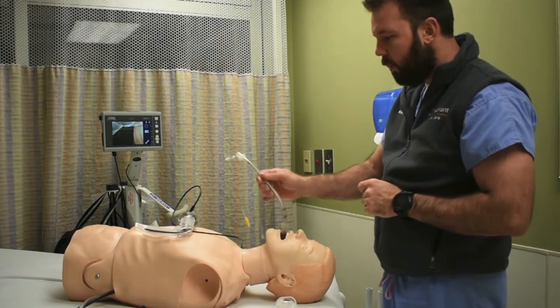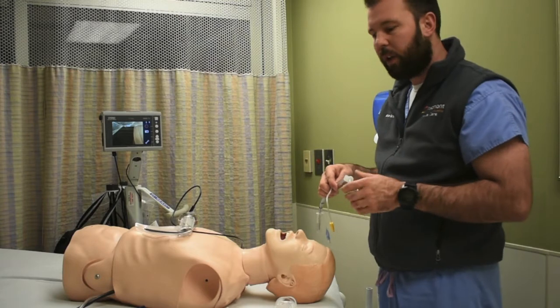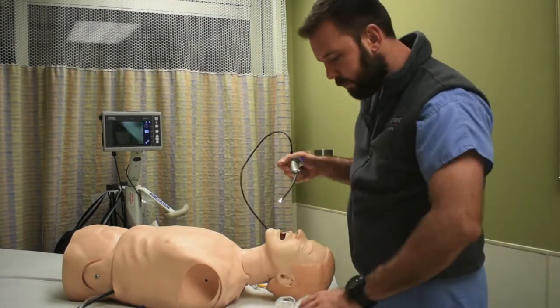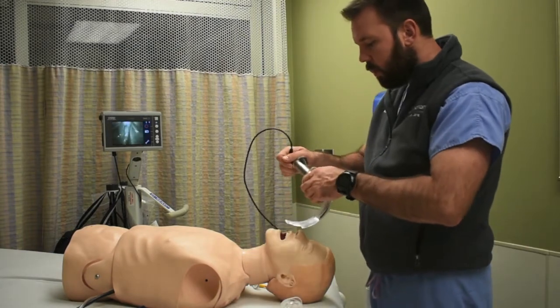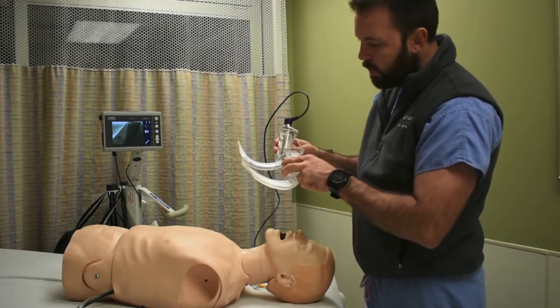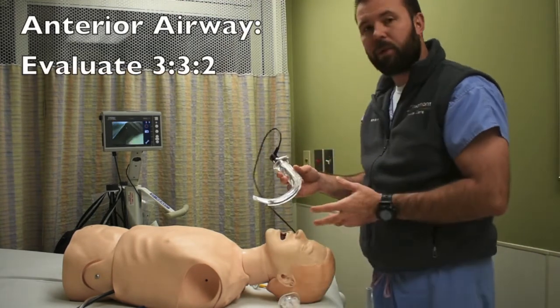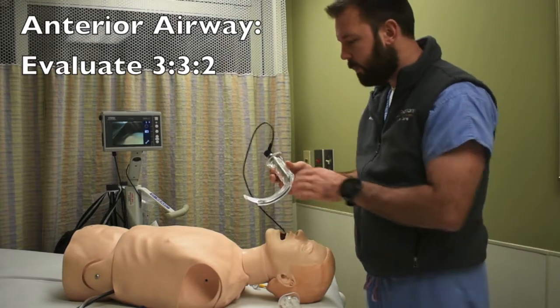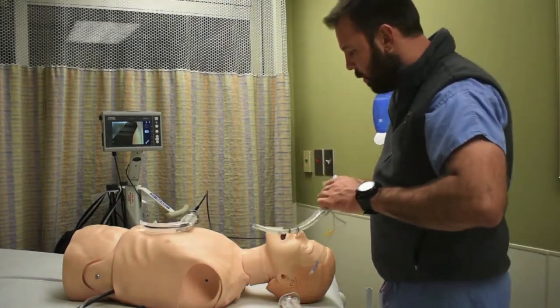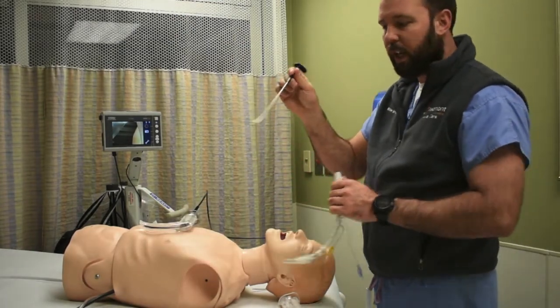Now I want to talk about a technique that's highly specific to video laryngoscopy, and that's the use of a hyperangulated blade. So the CMAC scope here is referred to as the D blade, and as you can see, the tip of the blade is just more angulated, and this helps you navigate an anterior airway. Now, with this D blade or hyperangulated blade, we should be using a hyperangulated and rigid stylet.